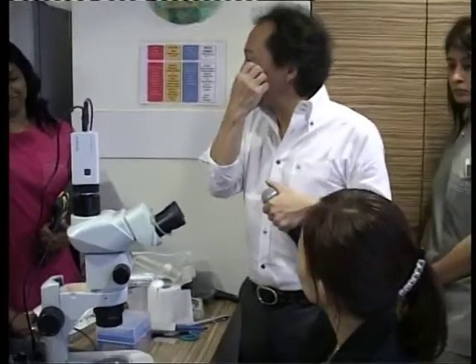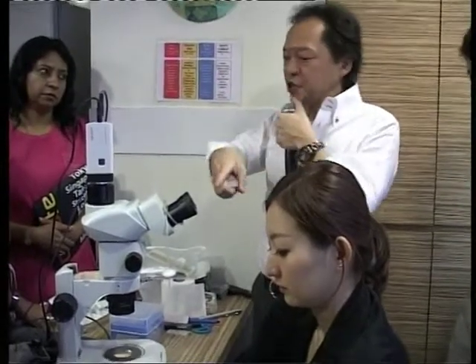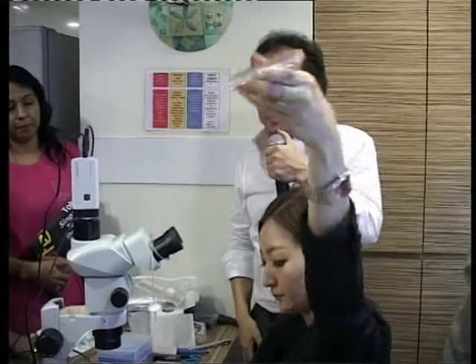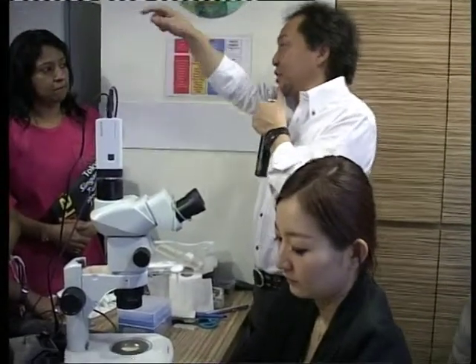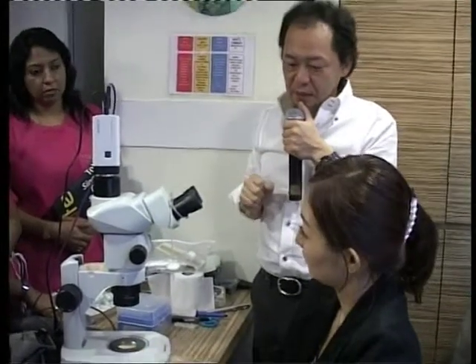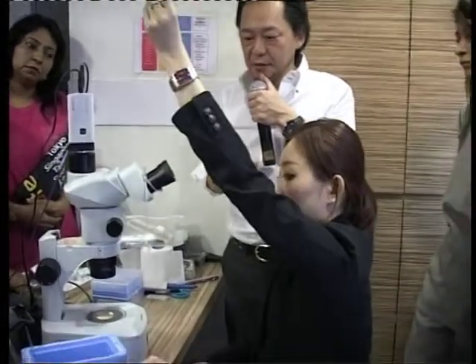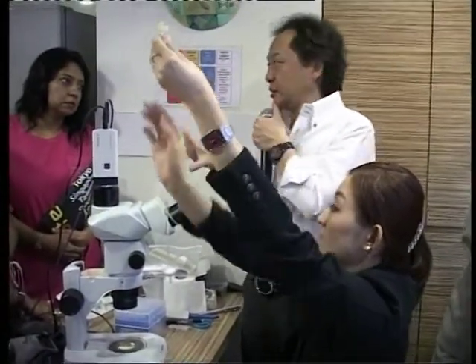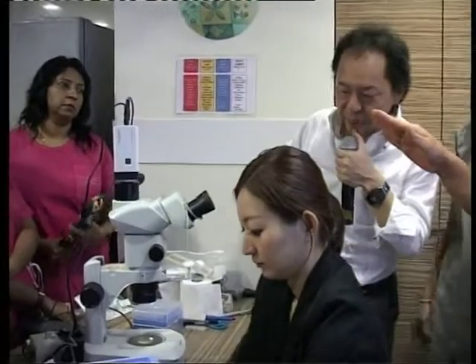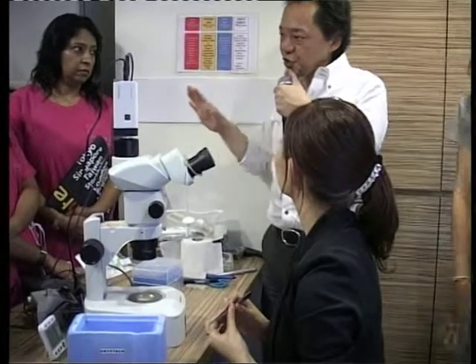Okay, let's warm. The warming kit contains one plate — the warming plate — it's for warming. There is a warming well and a dilution well. The plate is already on the incubator at 37 degrees centigrade. The warming solution is also in the incubator. The two other solutions — the diluent solution DS and the washing solution — are used at room temperature. One box is designed for one warming.